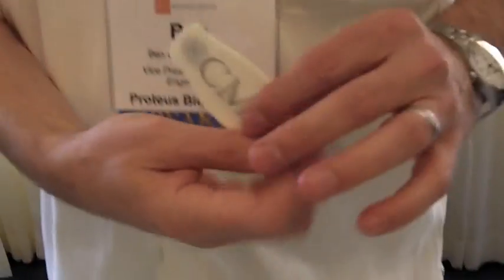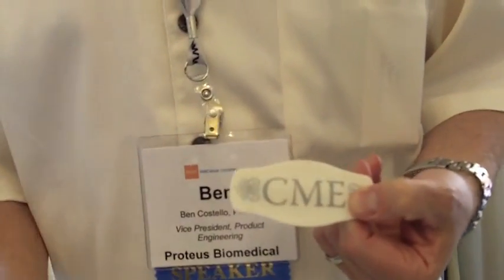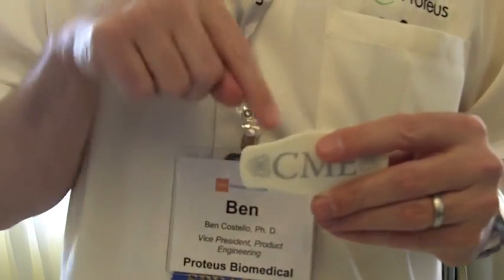The second component is a personal health companion. This is a smart band-aid you wear on your torso. It listens for the pill signal, and when it detects it, it logs the time and the exact medicine that you took.